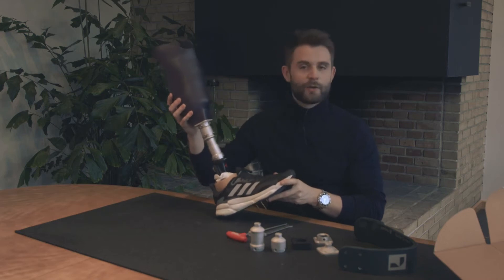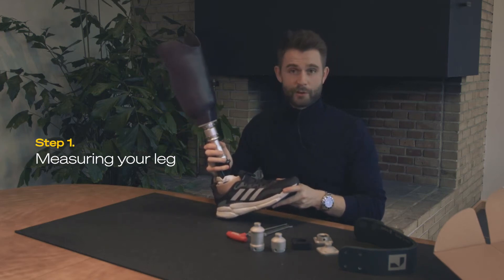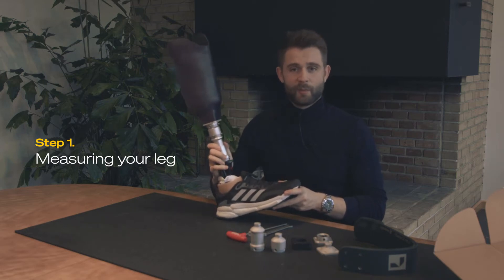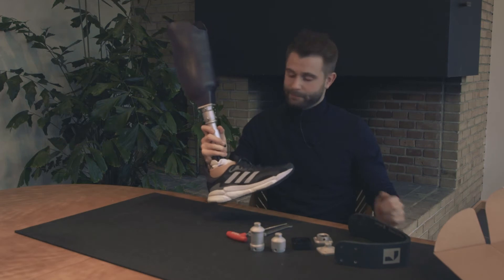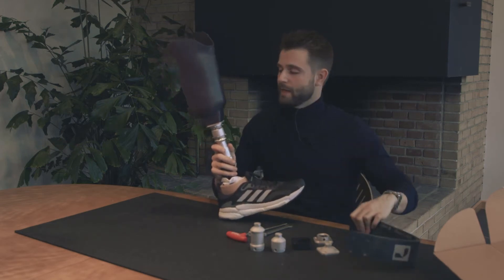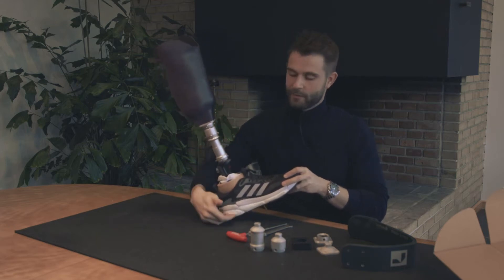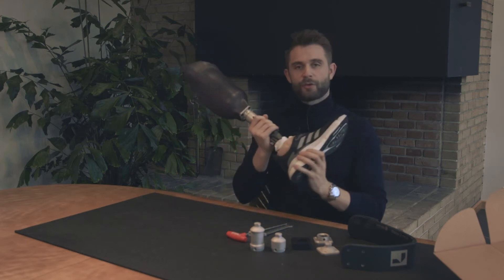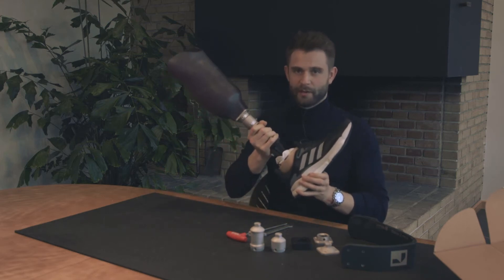Your walking leg probably looks something like this. What we need to do now is to determine what it is that we need to build in order to make this fit your everyday leg. We need to build a blade that is a little bit higher than from here to here. Make sure to have your running shoe on your foot while you build it so you know how tall to build it.